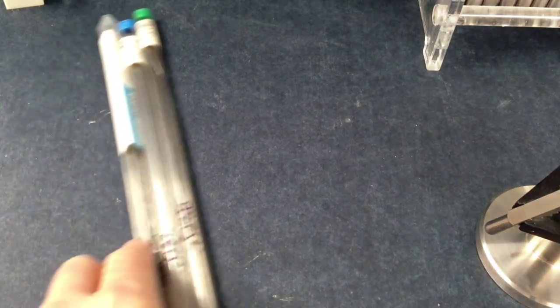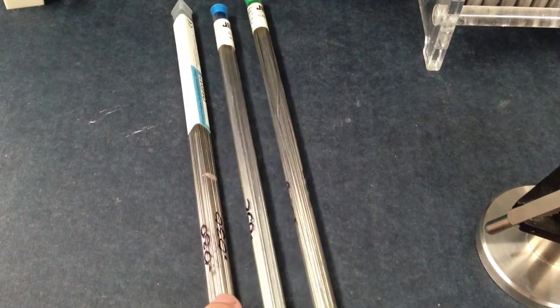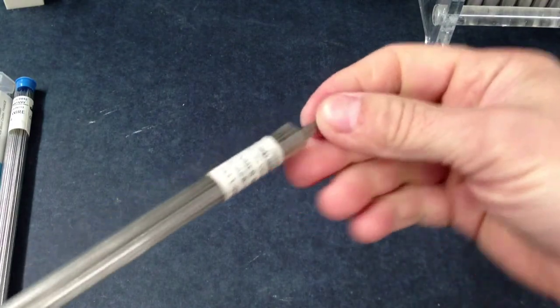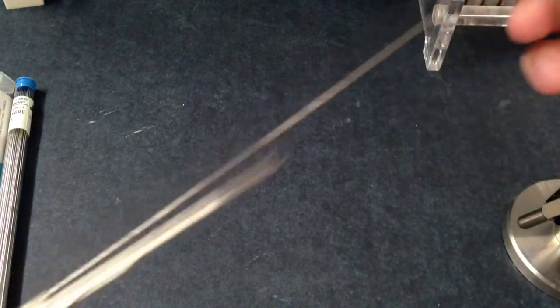Orthodontic round wire comes in different sizes. We are going to be sticking with 0.028 mainly, so they will give this to you in the dispensary as an individual strand.